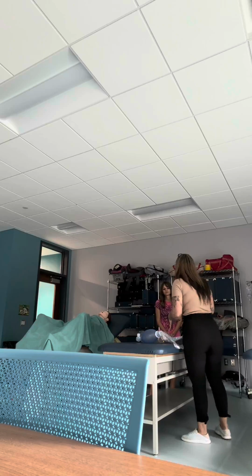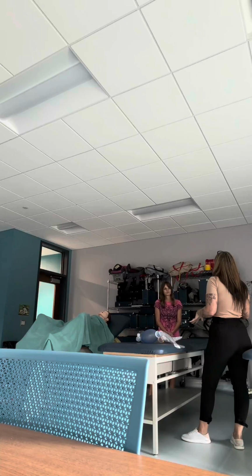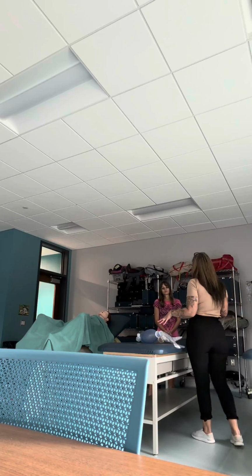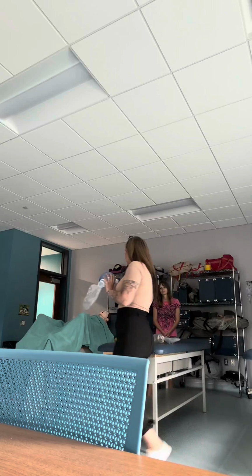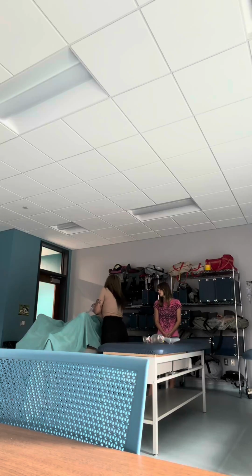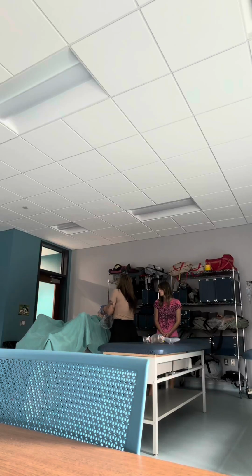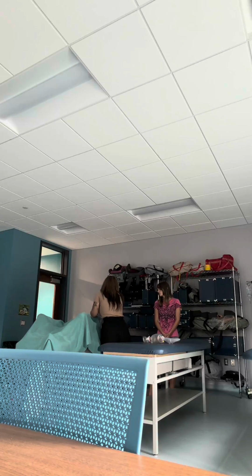All right, so some common errors that people make when ventilating with a BVM, right? Improper seal, that's our biggest one. Some people think, once I have my C-clamp on my patient and we're going 70 miles an hour down the road, that seal's just gonna stay. No, you have to constantly check to make sure that you have a good seal on your patient's face.